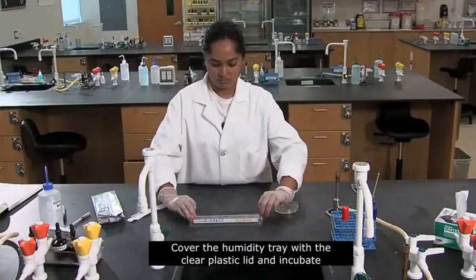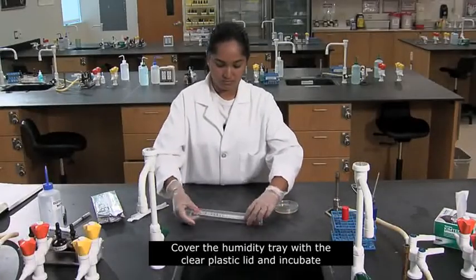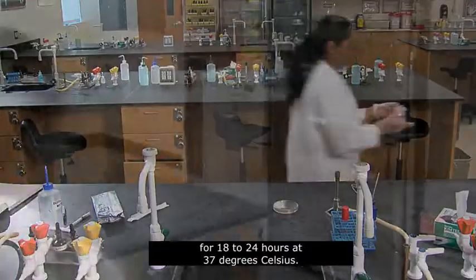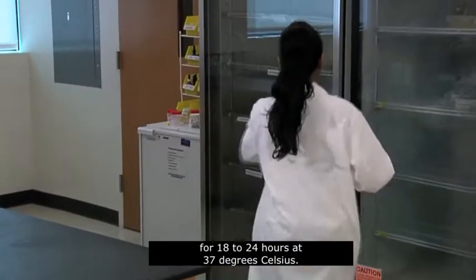Cover the humidity tray with the clear plastic lid and incubate for 18 to 24 hours at 37 degrees Celsius.